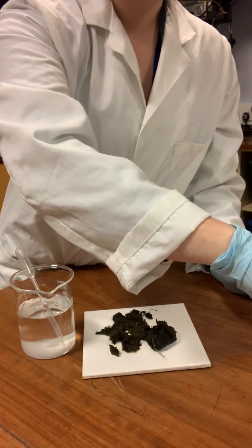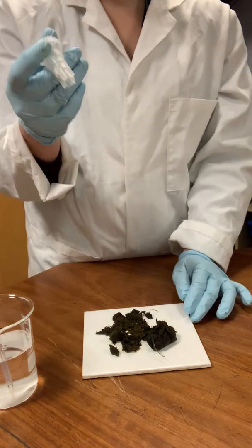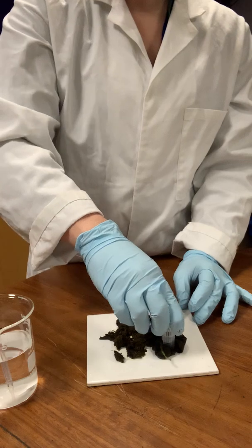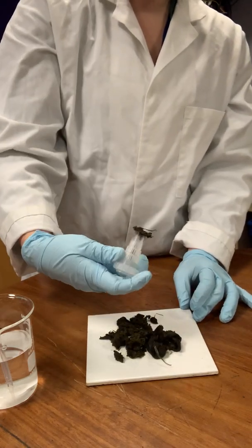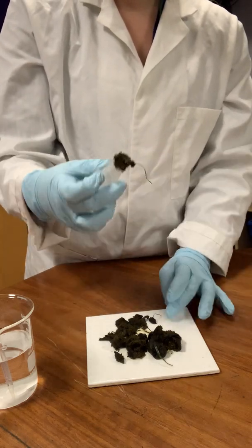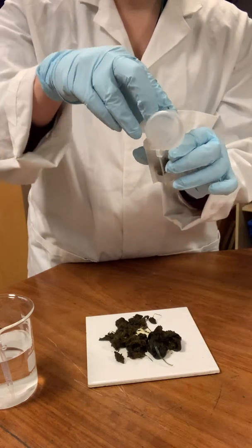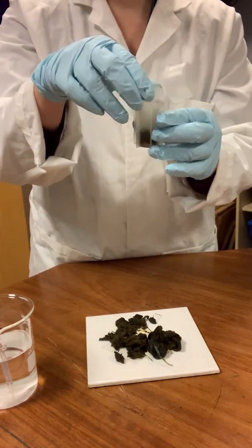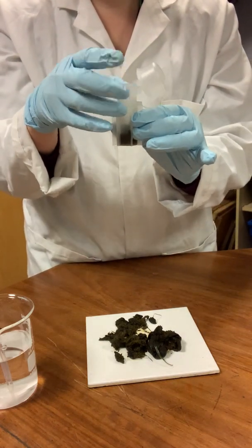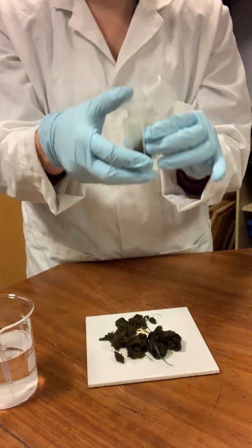Okay, and then you want to take the second part of your tube, so that can go to one side for the moment. And what we're going to use is, this is going to be a bit like a punch biopsy. So we want to take our sample and we basically want to push it down, nice reasonable amount of feces collected in that, so that we've got a nice amount of feces on the end. Okay, pop that into our tube, and what we want to do then is spin it around. So we want to start to get our sample in and around our solution, so give it some spins, and as you can see, it's already changing the solution at the bottom.